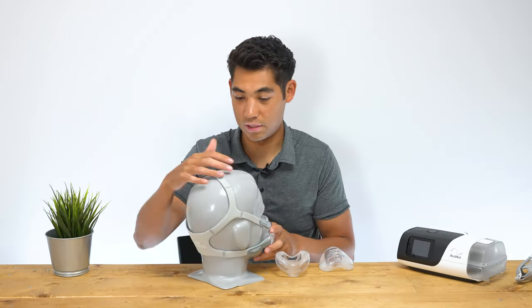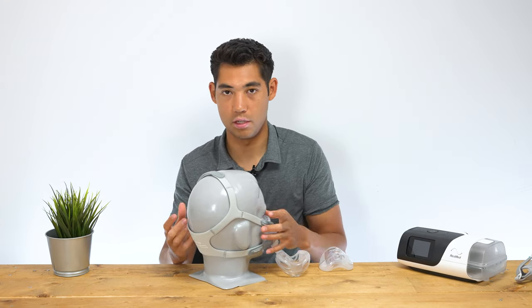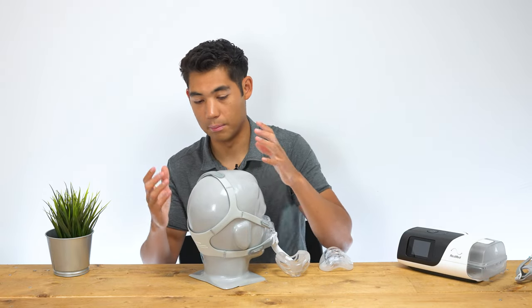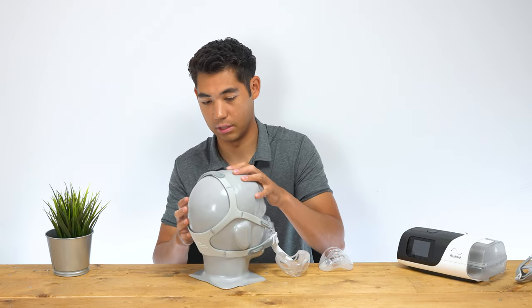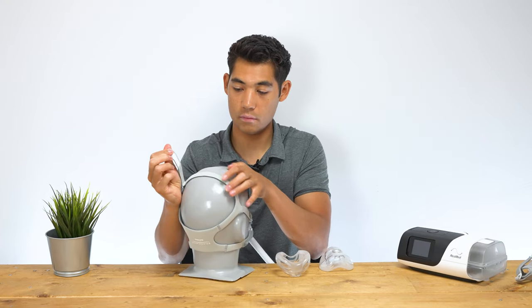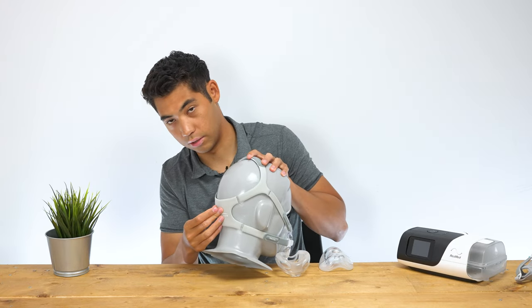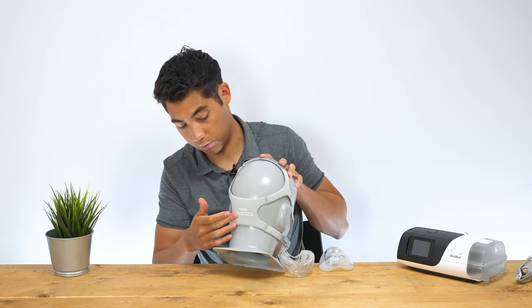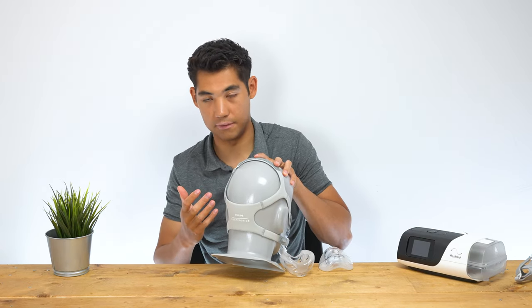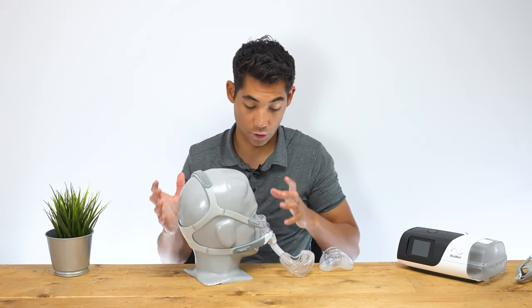Diving into the mask, we have some nice headgear here. I really do like the headgear and the soft materials from the Philips mask — not saying that the ResMed masks are bad, but I've always liked the masks from Philips. We have a top headgear strap where we can tighten it, and going to the back of the crown, we have the Philips Respironics logo. You can see this cross section really hugs the back of the neck area, giving it a quite snug and secure fit.